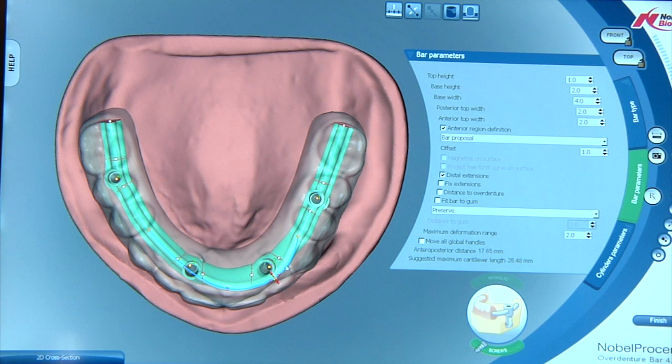So if I want handles behind each of these teeth, I can add extra handles as well just by clicking in those positions. So let's add handles behind each one of these teeth in the anterior region and start forming our bar. We're going to put one in the inter-proximal and then one behind every surface of the tooth, in the inter-proximals and the tooth surface itself.